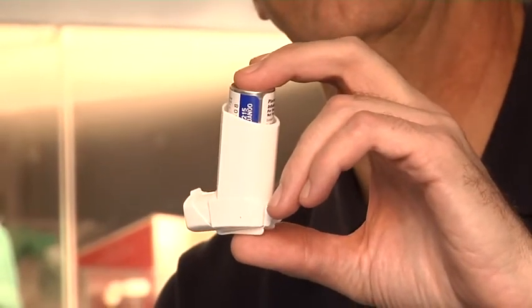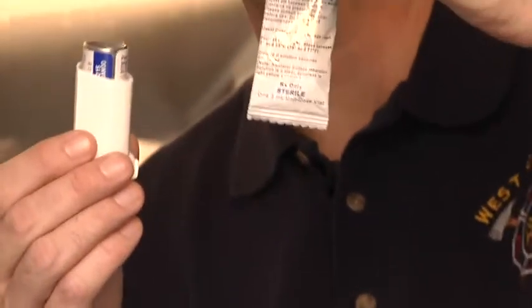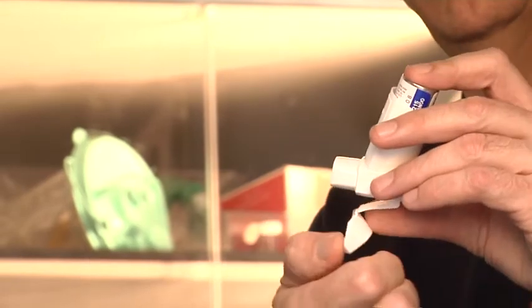We'll start with the meter dose inhaler. This is something that EMS providers at all levels have been accustomed to assisting patients with. In the new EMS educational standards, both meter dose inhalers and small volume nebulizers are given to patients at the EMT level and higher. EMS agencies under local and regional protocols carry bronchodilators in meter dose inhalers, and there are times when a meter dose inhaler may be preferred over a small volume nebulizer, which I'll talk about in a few minutes.